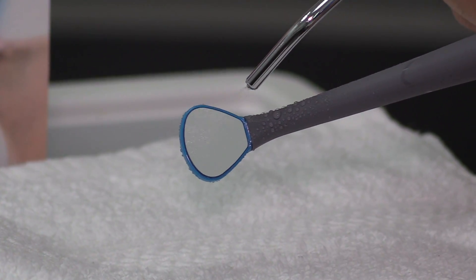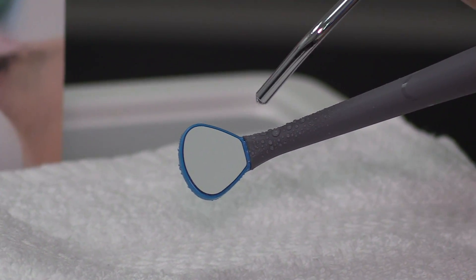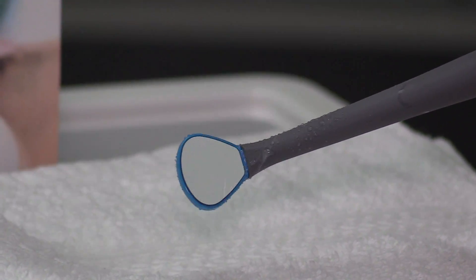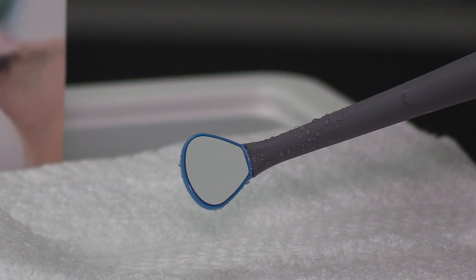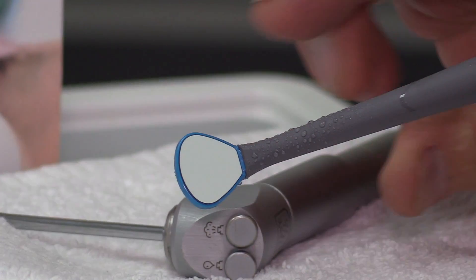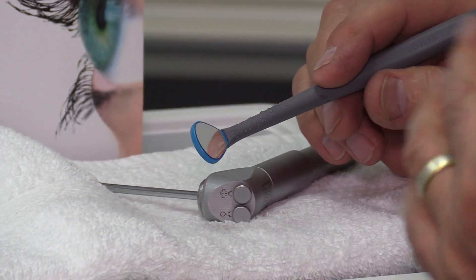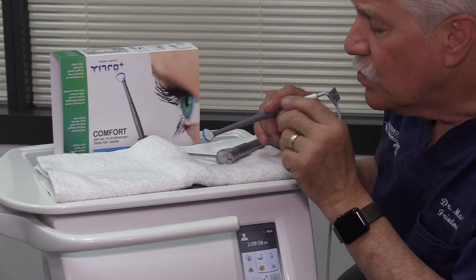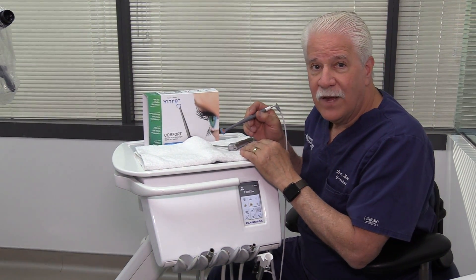What we're really talking about is a system that keeps that mirror perfectly clean and clear at all times — whether you've got an air spray or saliva. Because you're keeping that laminar flow and not getting any moisture staying on that mirror, it's not going to dry on there and give you spots. So that mirror should stay spot-free for the entire clinical procedure. Really very ingenious system, and one that I can't wait to try.